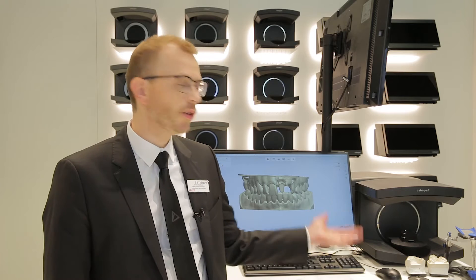Hi, I'm Sven Nundbo. I'm the senior product manager at 3Shape responsible for the lab scanners and software. I'm here to tell you a little bit about the e-scanners — really affordable, high-quality scanners available to any lab.